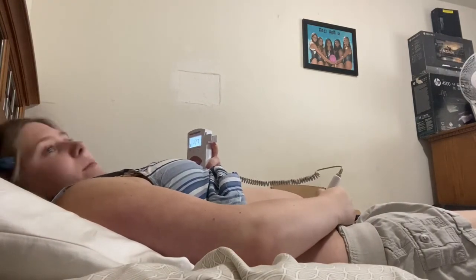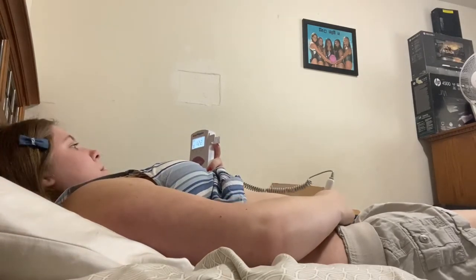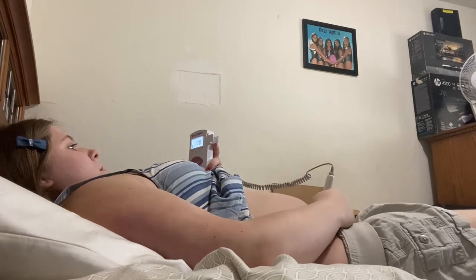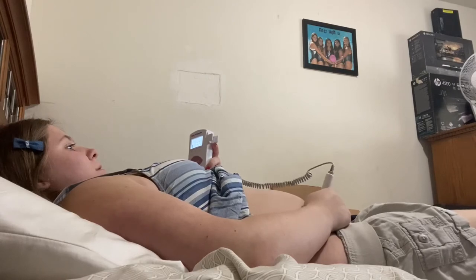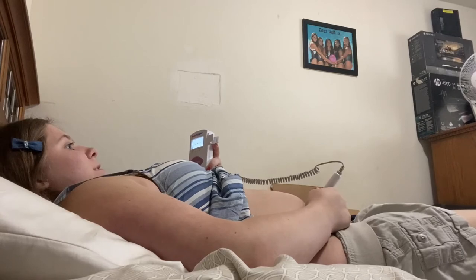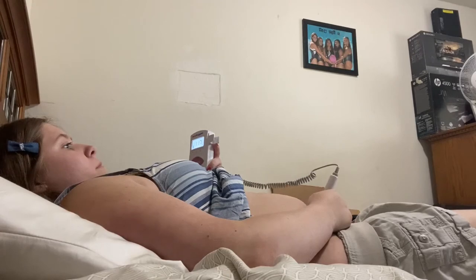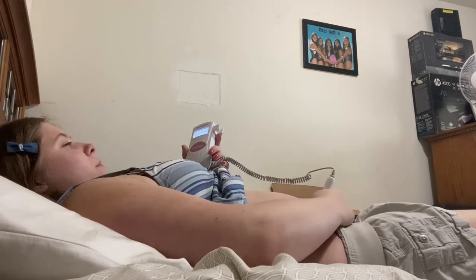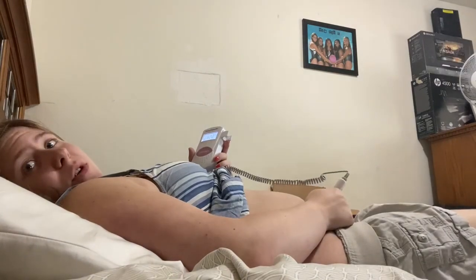It takes sometimes a little bit. I'm pretty sure she's asleep right now because I just ate. But I think that was a good representation for you guys. It's best to do it on the lower part.